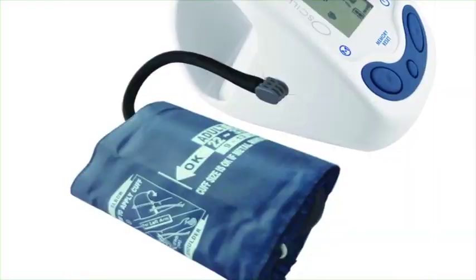We incorporated our inflate-read technology, unique to us, which captures the entire reading on the inflation and is 40% faster than traditional devices, making the reading more accurate and quicker.